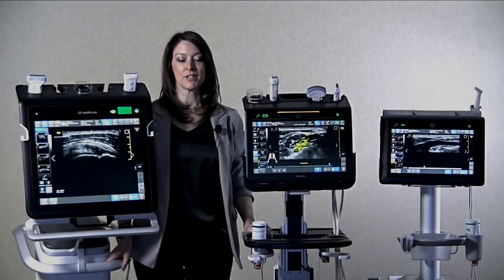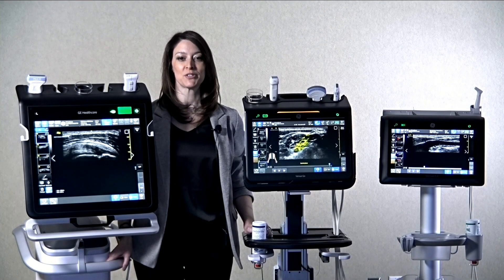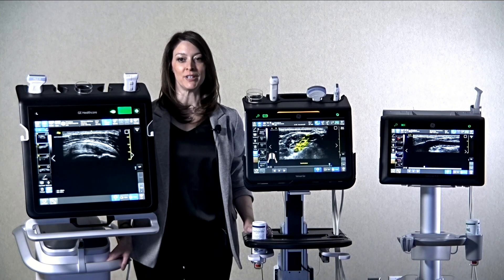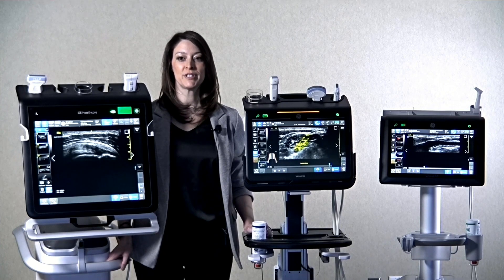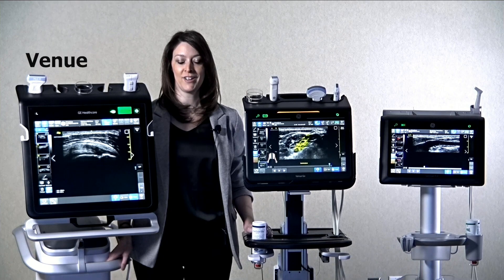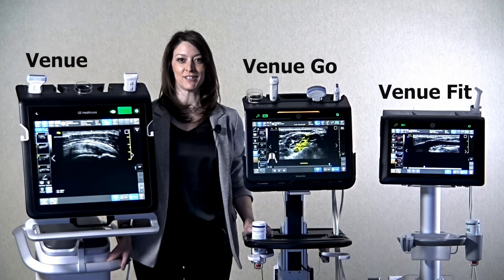Hi, I'm Erin Sahlwasser, POC Clinical Application Specialist for GE Healthcare. I'm here with Elizabeth Erickson Newman, and we're excited to introduce you to the new C-Nerve feature on the Venue family of products for point of care — the Venue, Venue Go, and Venue Fit. Let's get started.